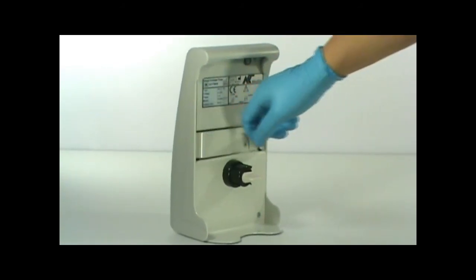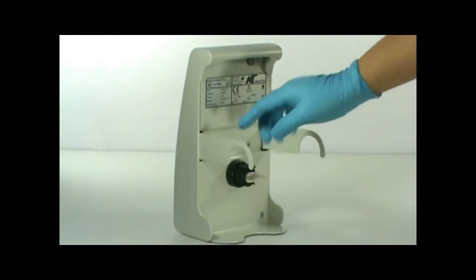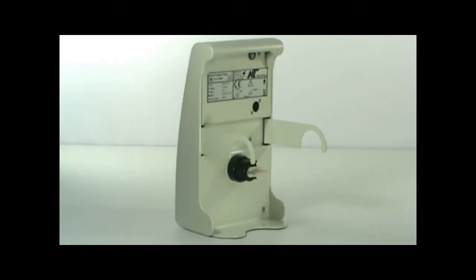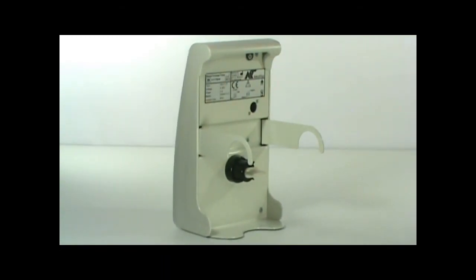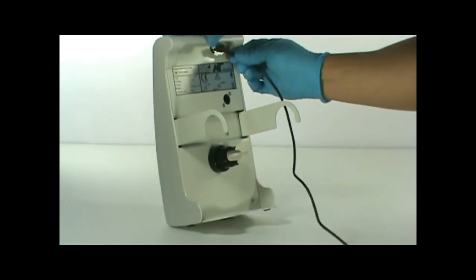Place the bedside handles to their proper position. Connect the power adapter to the power input like so.